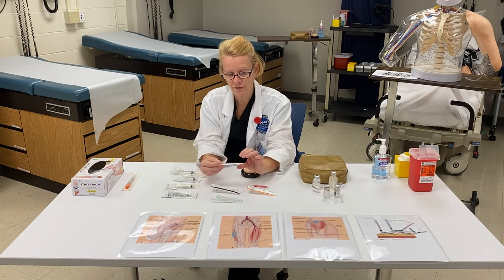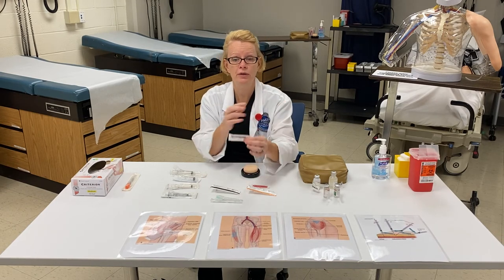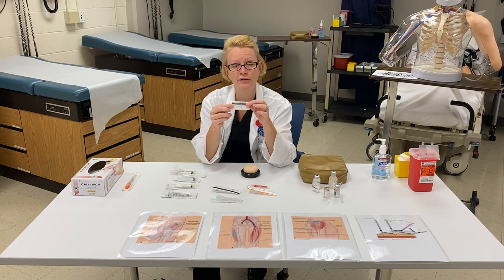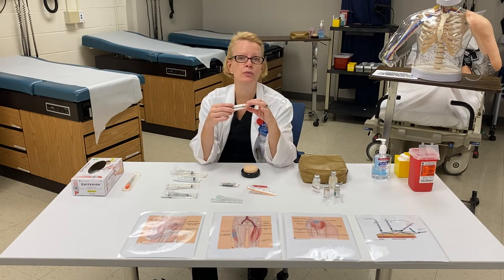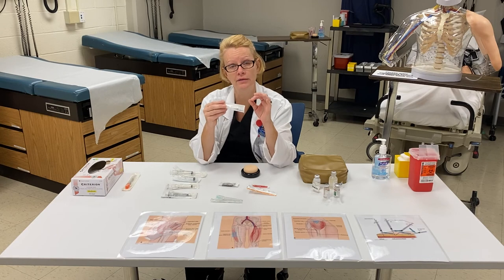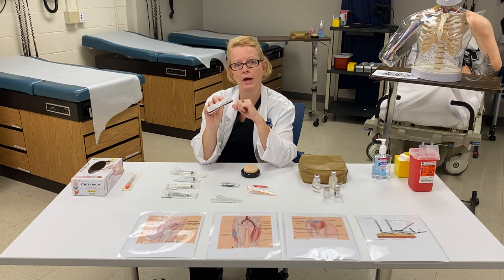I just wanted to show you the difference in terms of size, and that may be dependent on how big the muscle of the patient is. So if I am going into maybe somebody's deltoid muscle, I may use a shorter needle, like a one inch needle. This intramuscular needle is a 22 gauge, one inch needle. I can use that in the muscle, probably more likely in the deltoid, because it's a bit of a shorter needle. Now if I want to go into a deeper muscle — let's say the ventral gluteal muscle — I may go ahead and pick a longer needle. This needle is a 22 gauge, except this needle is one and a half inches long.